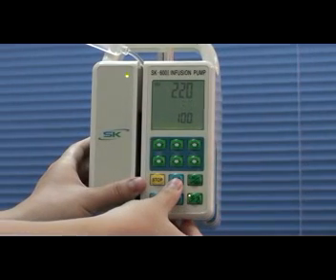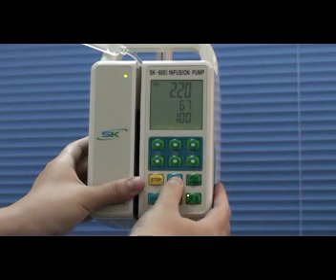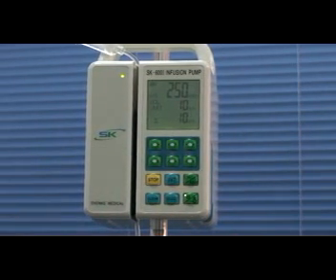Then press set key to save it. Now the accuracy value is reset for the new IV set.